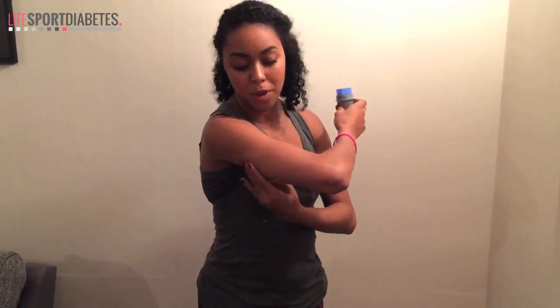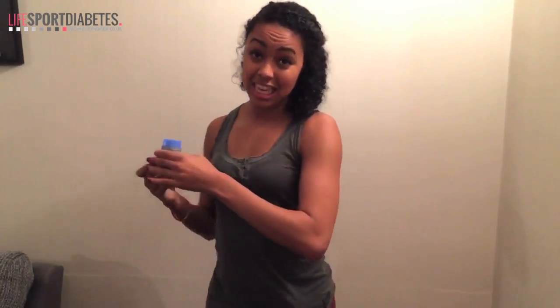First of all I'm going to feel for exactly where I want to put the sensor, because I don't want to mess about when it goes in. About here is the right place. As you can see, my previous sensor was about by there.